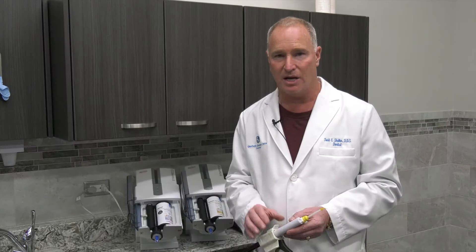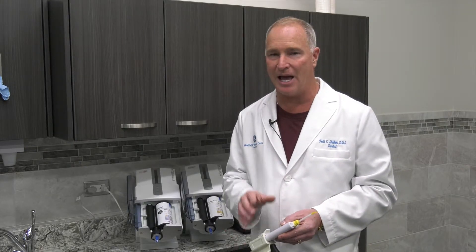It's really important not to use something like alginate for your impressions that you send out to Buffalo to have stents and crowns and bridges made for the first technique. We've got to have very accurate polyvinyl impressions. This product is fantastic and you're going to love it.